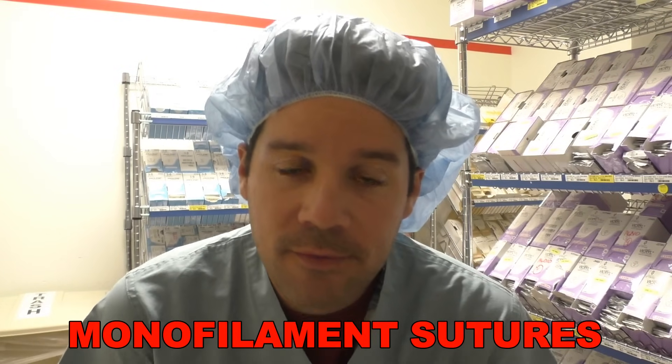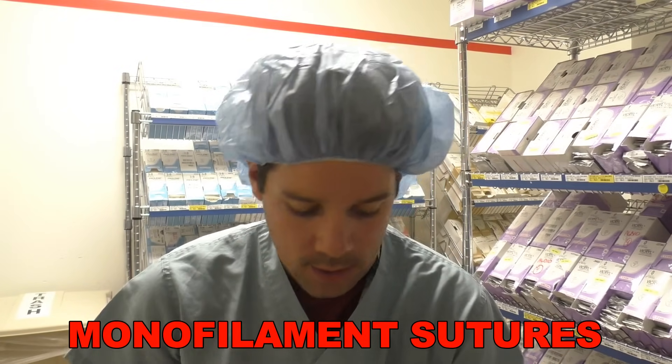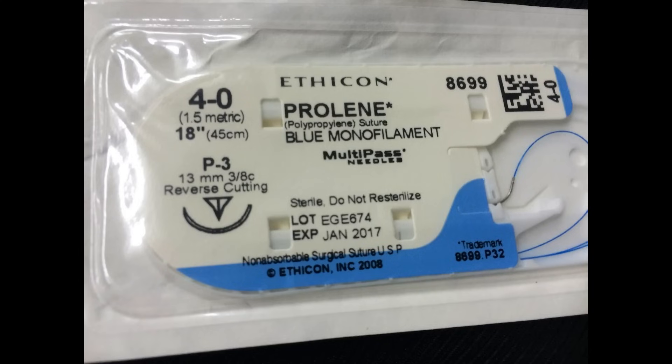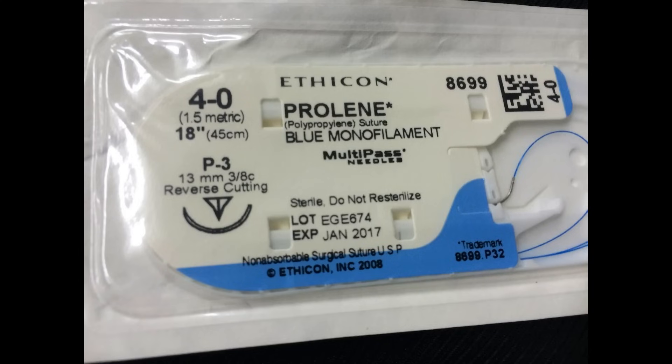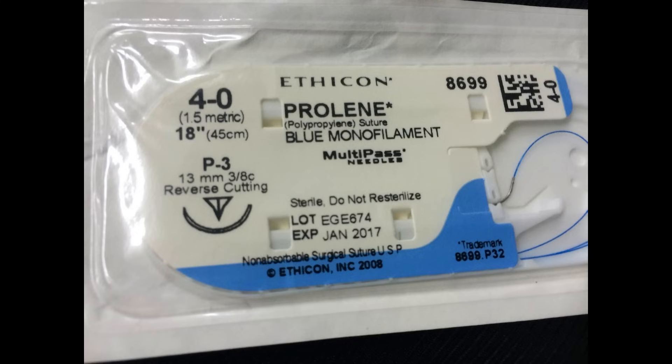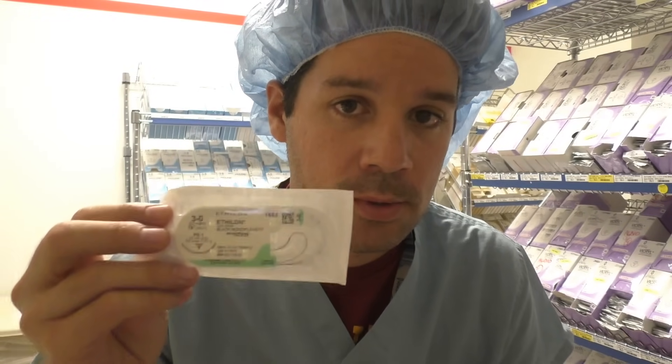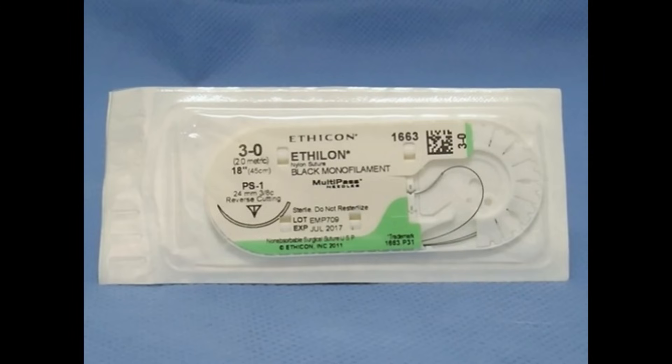Now we move on to the monofilament suture — the single strand suture. Starting with non-absorbables: the first one is Prolene. The packaging looks similar to silk but is a little more of a bluish color, and the suture itself is also dyed blue. Prolene suture is used all the time in vascular — it's a monofilament, non-absorbable suture. The second monofilament is nylon, also known as the Ethylon suture. This monofilament, non-absorbable suture is black in color just like silk, but the packaging is green.